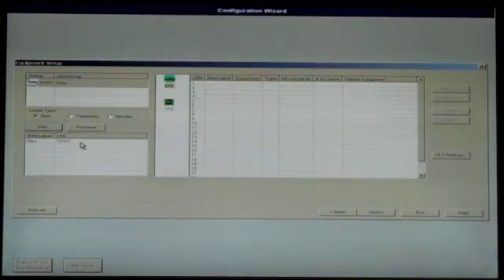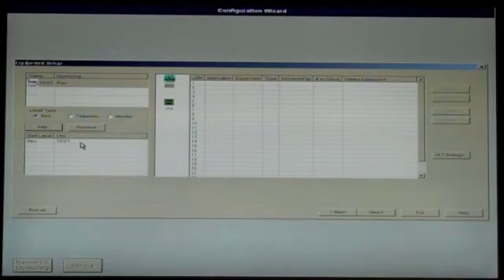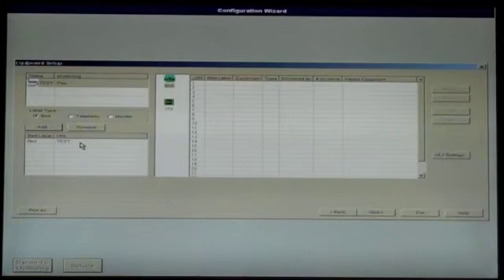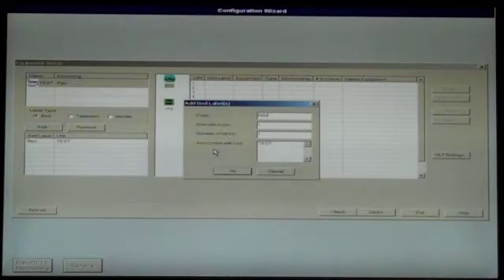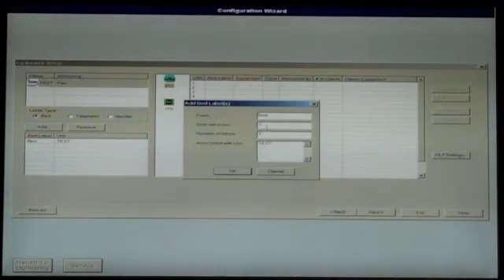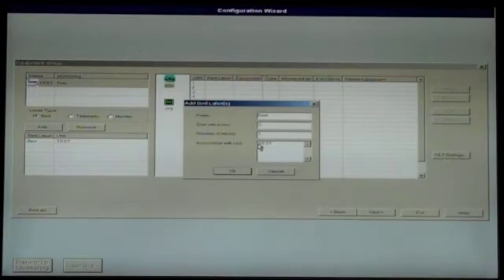The prefix you select here will be the displayed prefix in the sector in monitoring mode. To add multiple beds with the same prefix, follow the same process, except do not clear the Start with Index field, and change the number of labels field to the number of beds you need to add.